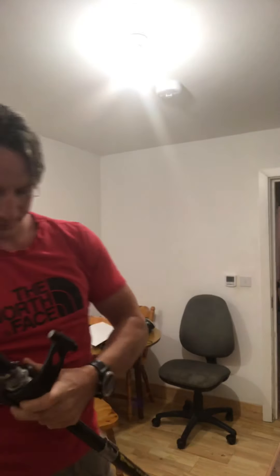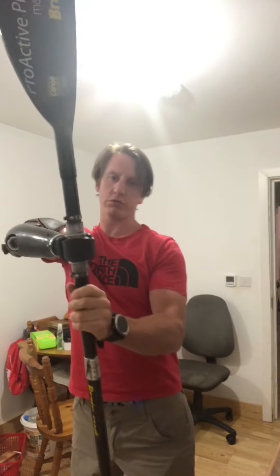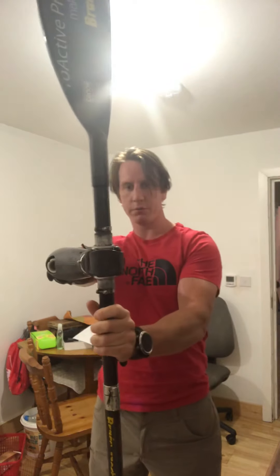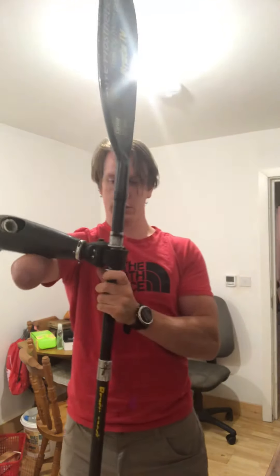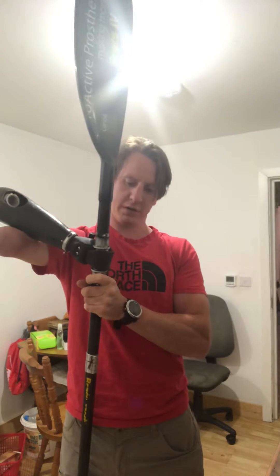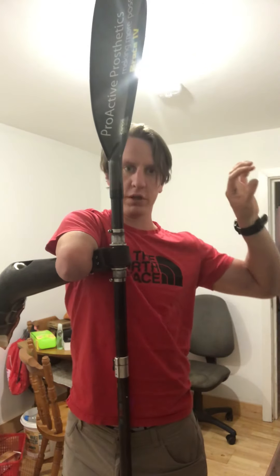There's a rubber hook which is off the shelf. What this rubber grip gives me is a little bit of movement — not a huge amount, but because it's rubber it's got a bit of flex. So I can get a fair way with it, and I guess what that represents is that kind of motion in the wrist.